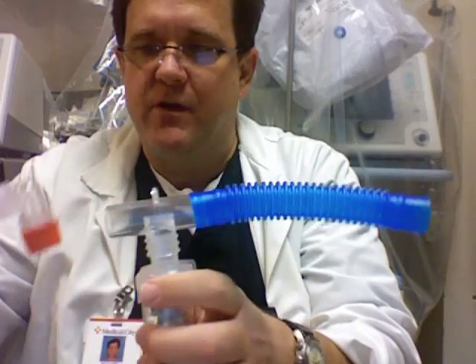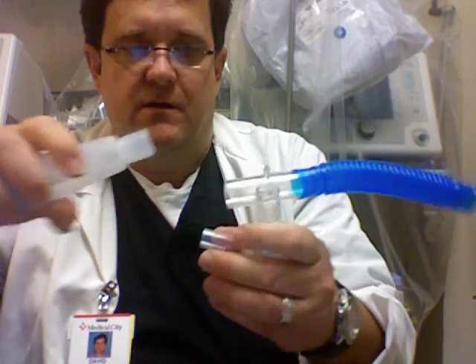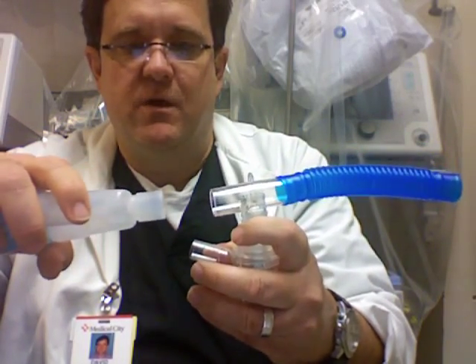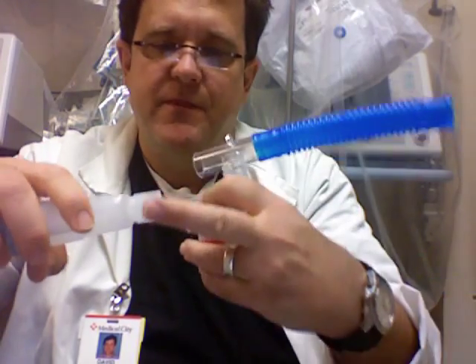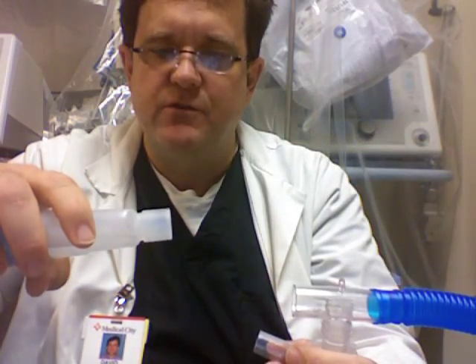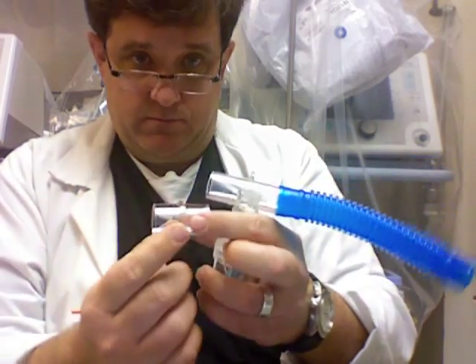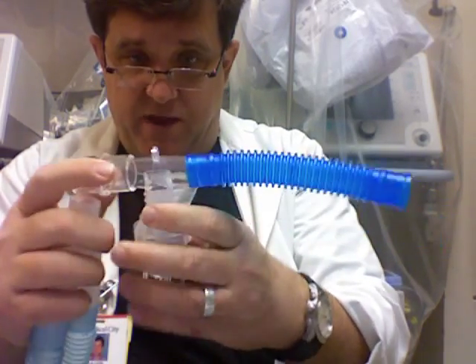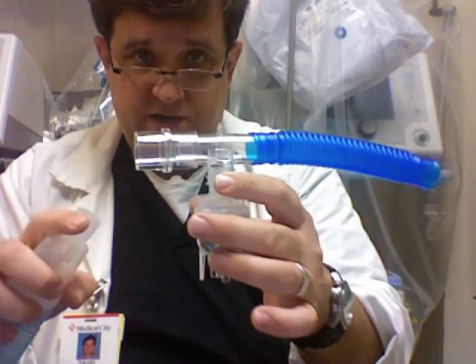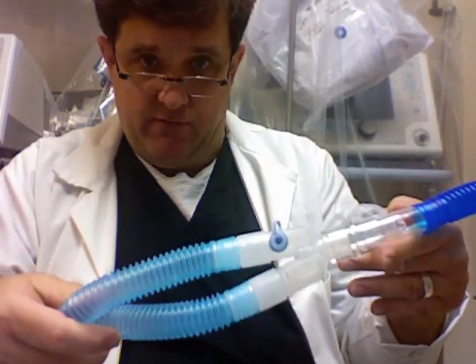If you're going to put the nebulizer in front of the HME, as some do, then you'd need an adapter. The outer edge of this piece is 22 millimeter OD and the inner edge is 15 millimeter. It took a 22 millimeter female adapter in order to connect this end to the nebulizer. Some nebulizers are made with multi-size ends on the T, which is very helpful so you don't need this adapter — it can attach directly to the front of the ventilator Y.